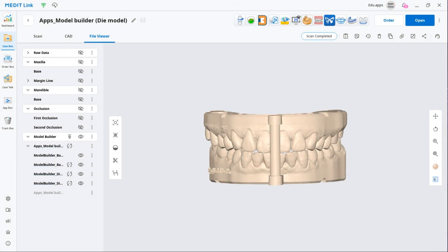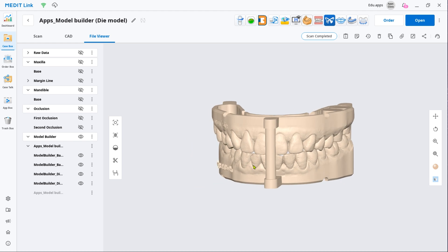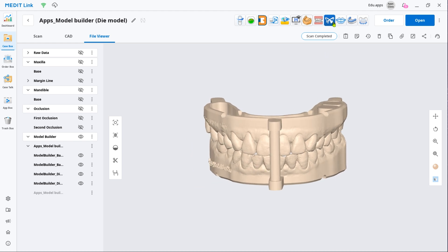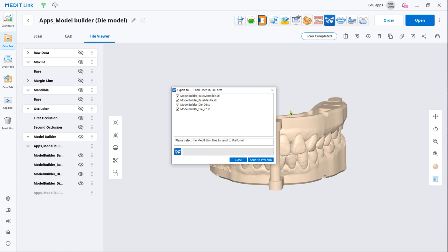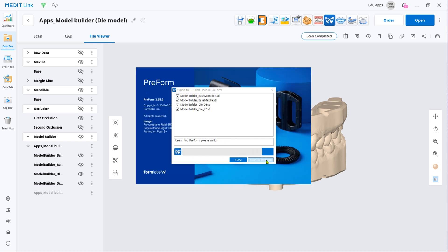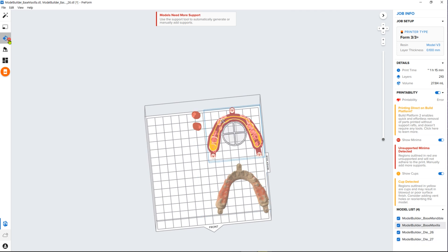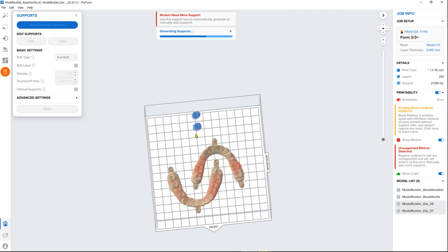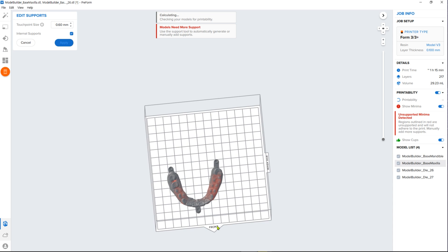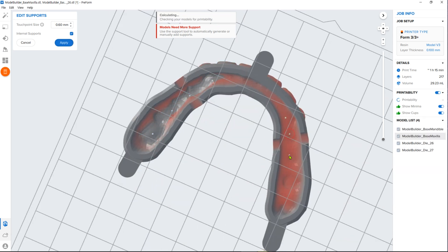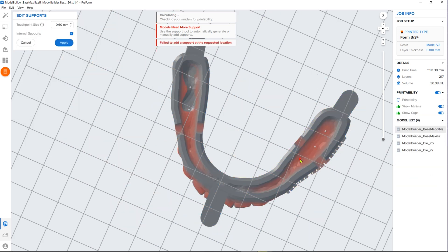Now you have a 3D printable model. If your 3D printer manufacturer has an integration with Medit, you can find their app in our App Box. Install it to export the completed project file directly from MeditLink to the CAM software. Select the file you have just created and export it to prepare the model for 3D printing. When printing a hollow 3D model, it is recommended to add internal support in hollow parts to avoid unsupported elements floating in the tank.